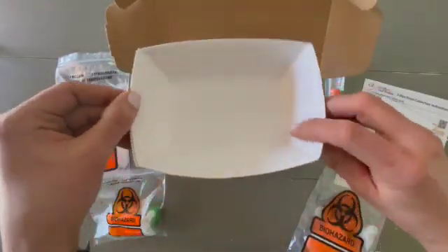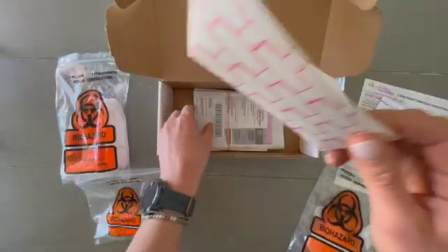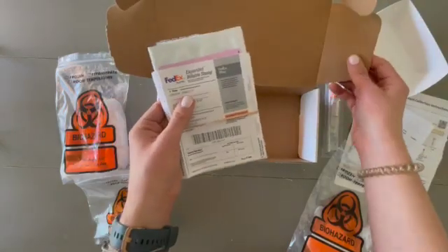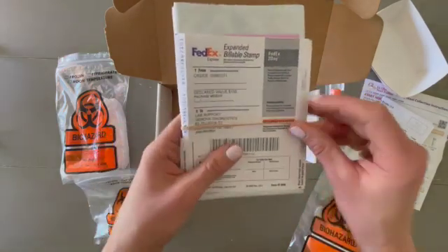You'll get these nice little trays — these are your stool collection sample trays, so you'll need these in the bathroom with you. And then at the very bottom you'll also find a shipping label. This is a prepaid envelope that the whole box will fit into.